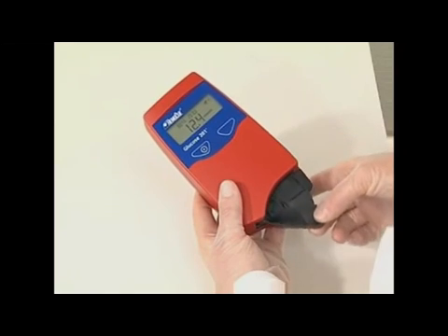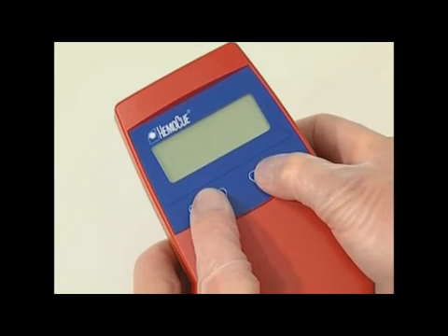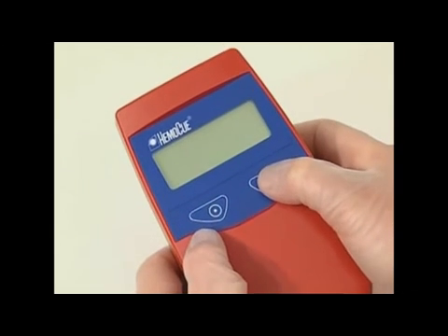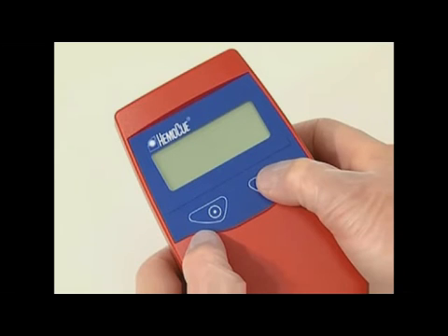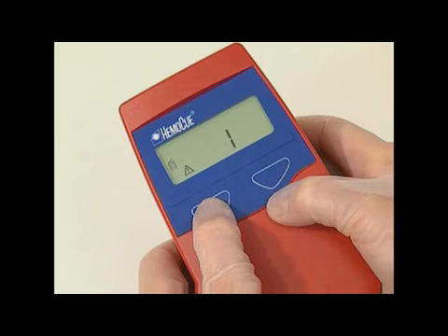If in the measuring position, pull out the cuvette holder and wait for the HemaCue symbol, after which a new measurement can be made. Press both buttons at the same time — the display now shows a flashing QC symbol. Scroll using the right button until the display shows a flashing waste bin in the left corner. To delete the most recent result, press and hold the left button. A warning triangle together with the number one appears in the display for approximately three seconds. The most recent result has now been deleted and the display shows a zero to confirm. Note that the most recent result can only be deleted immediately after the measurement has been made.